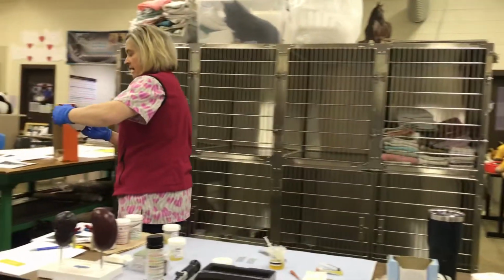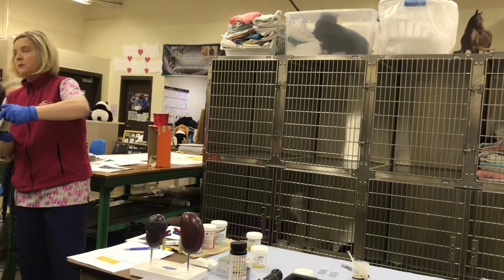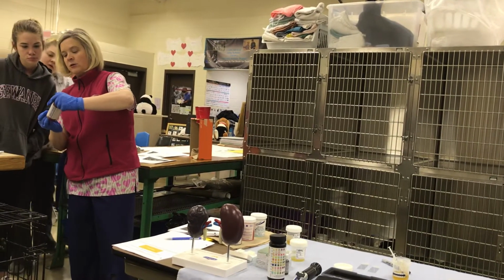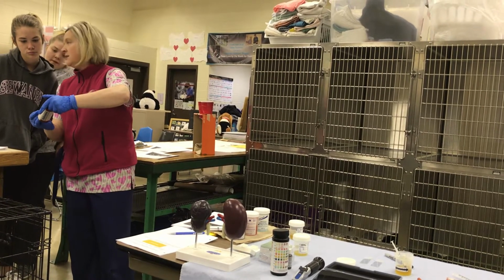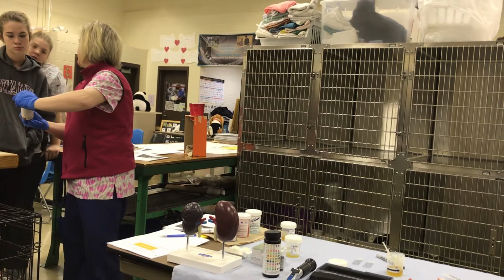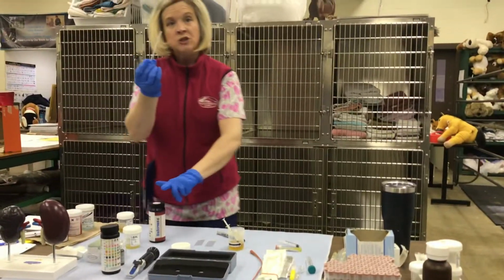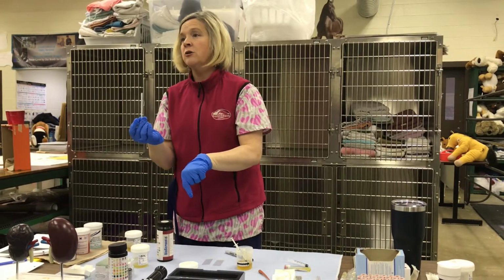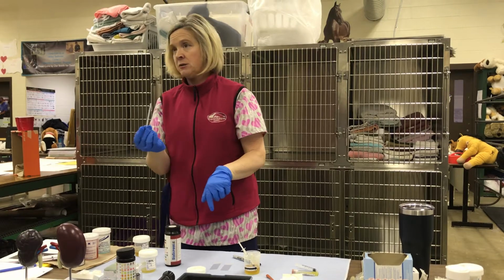Your leukocytes are negative. Another one we're looking at is bilirubin, which you guys talked about. We're looking for a color change, and because the urine was so dark, it's hard to look at, but really none of those colors match up. As you take those results, you're going to put them on your urinalysis report sheet. Any questions?